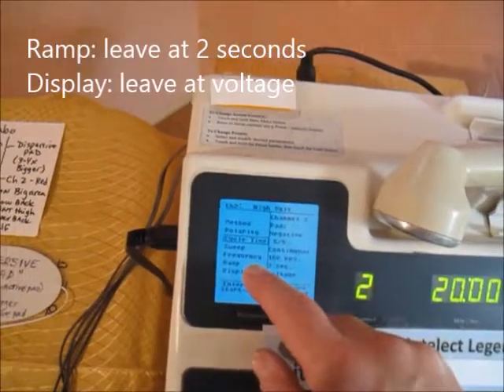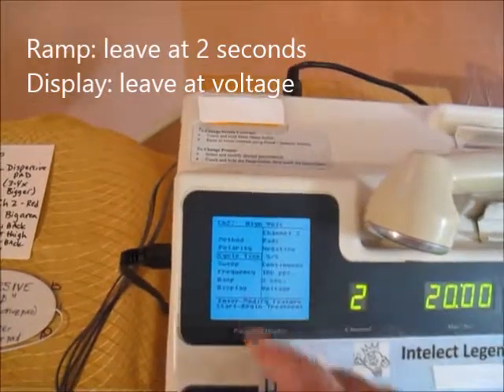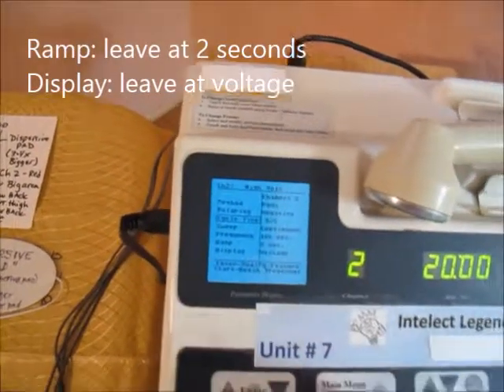You don't have to mess with the ramp. That's how fast the impulse comes in. You don't need to mess with the display, so just leave them alone.